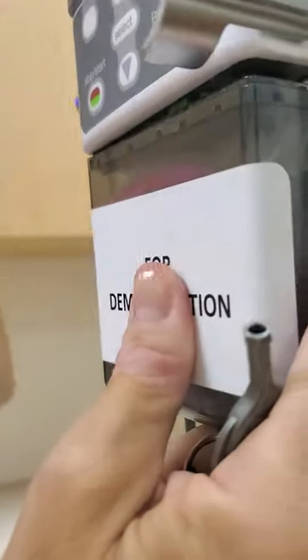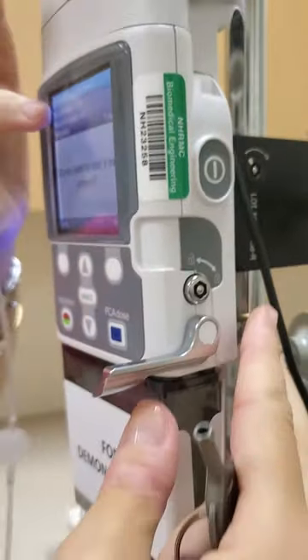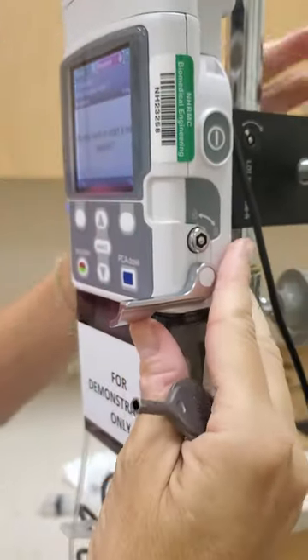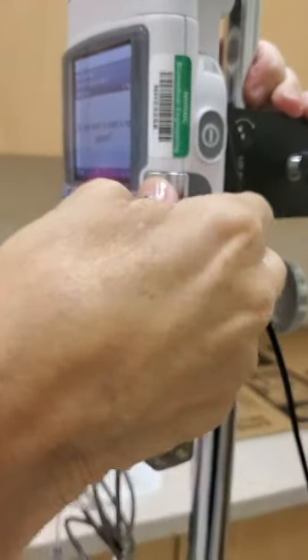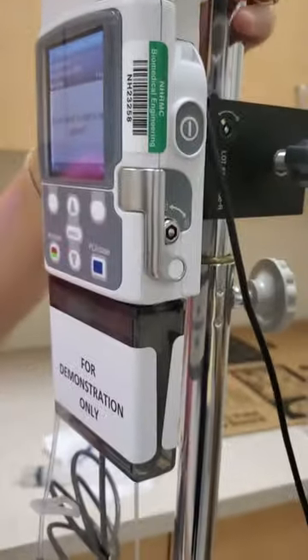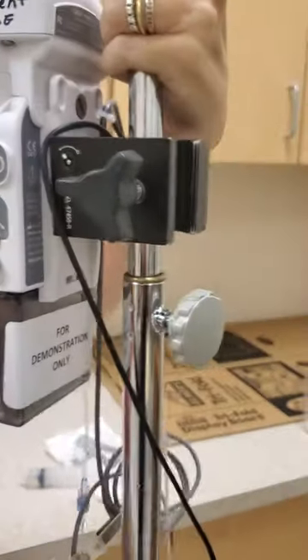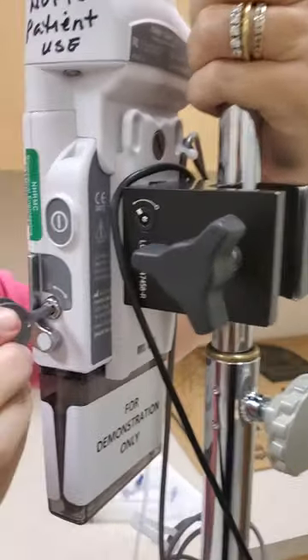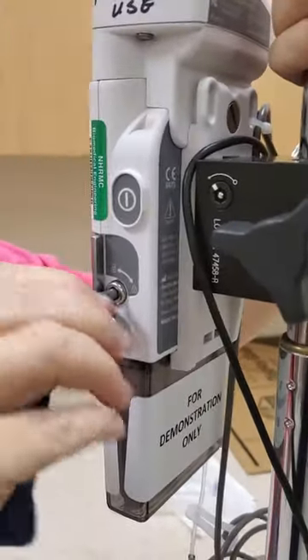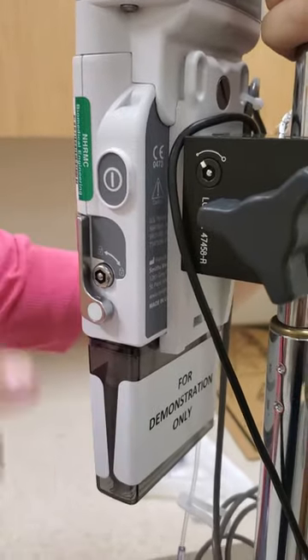I'm going to open that latch up. You hear the click and it says the latch is opened on the front. Then I'm going to push the latch up and, on the side, lock it with the key.